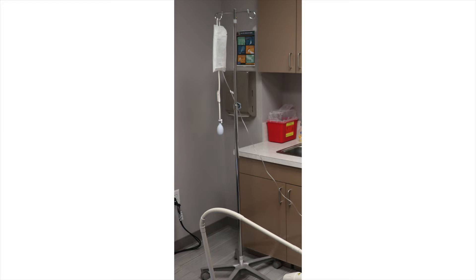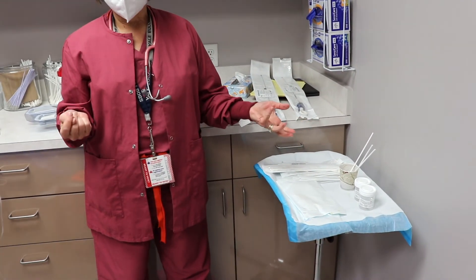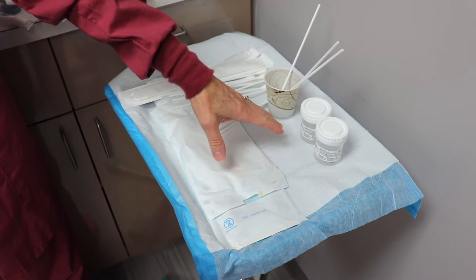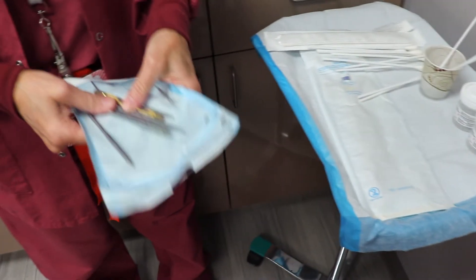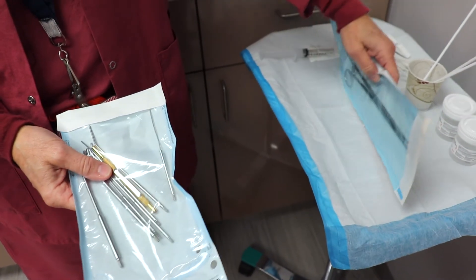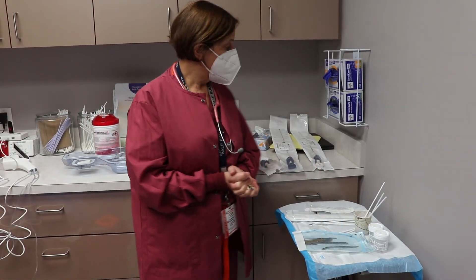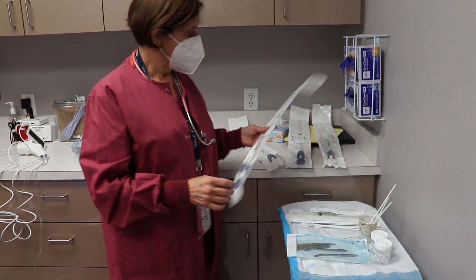The other equipment we have to do this: we have some betadine, or if the patient is allergic to iodine we use Hibiclens. We have swabs, specimen containers, and dilators so we can dilate the cervix. We have a tenaculum to hold on to the cervix so it doesn't move and gives us some traction.